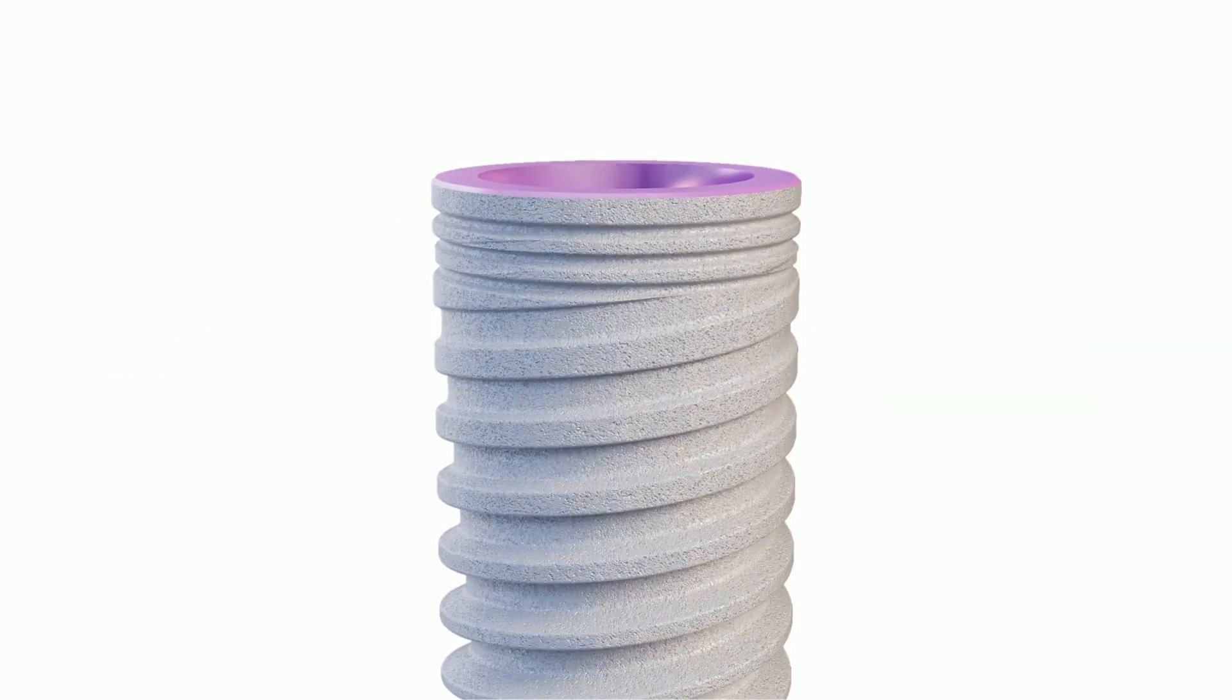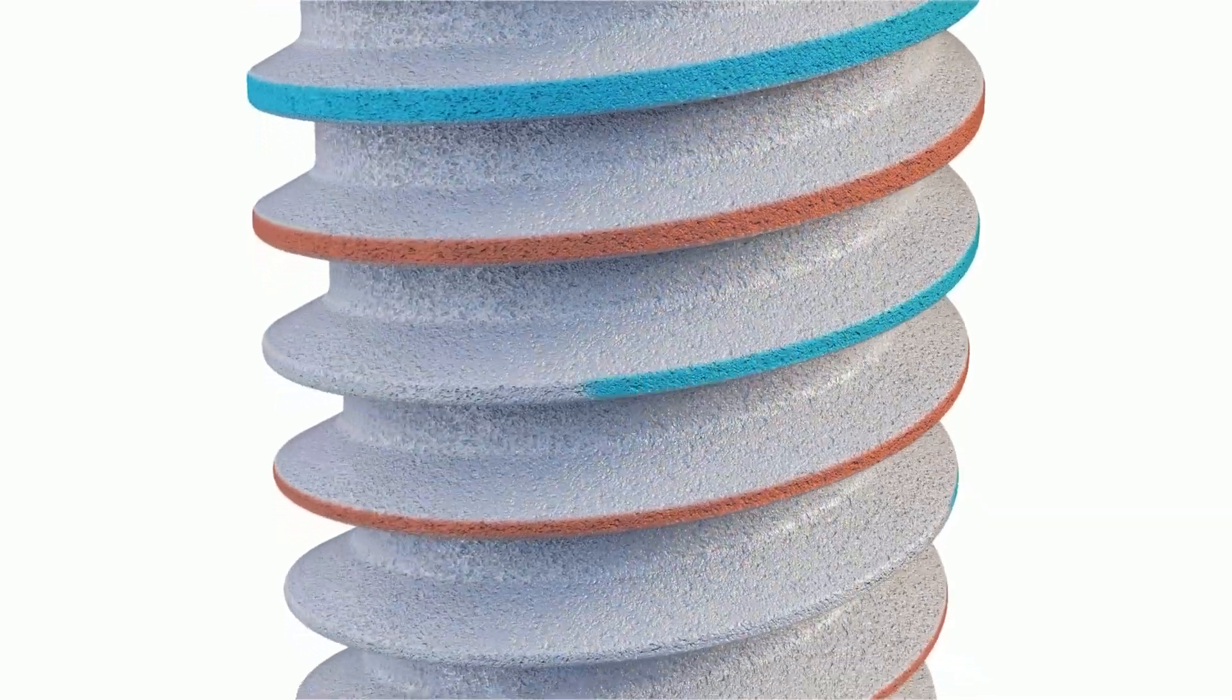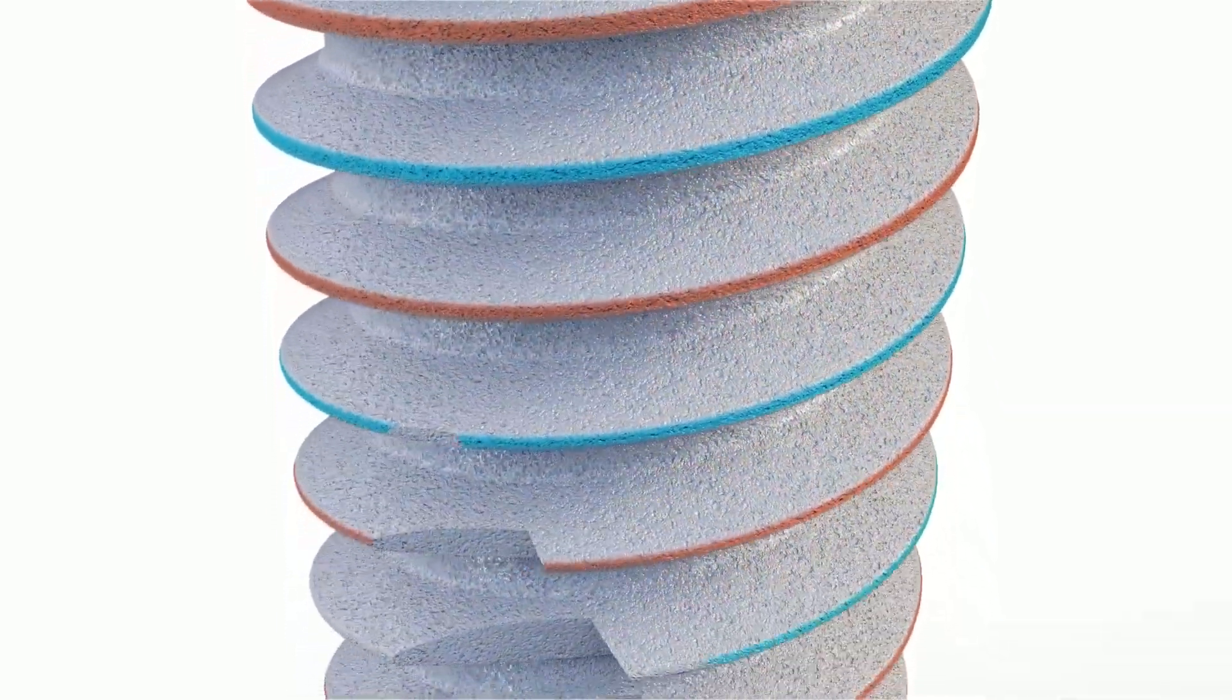The C1 dual-thread design increases the bone-to-implant contact over the entire body of the implant and ensures a safe and controlled insertion rate.